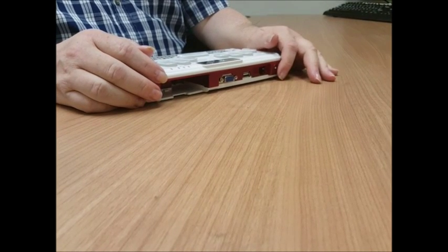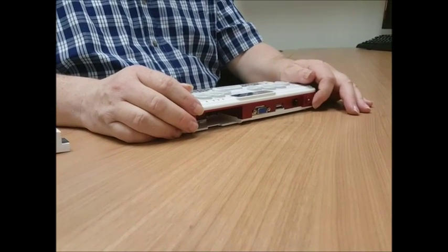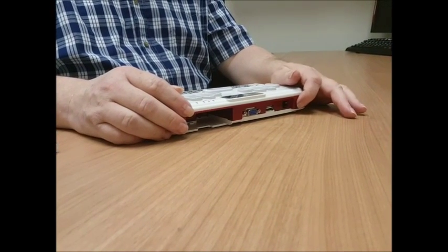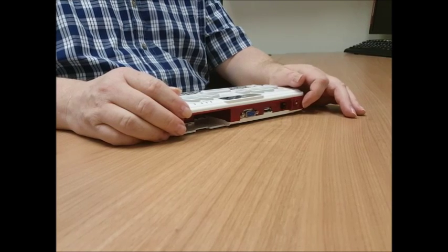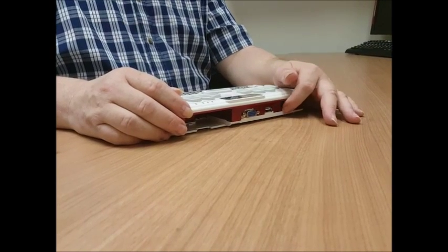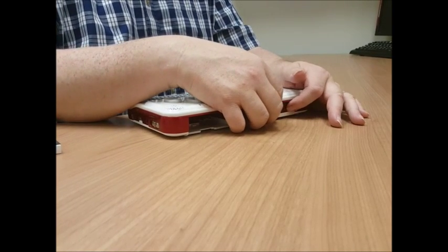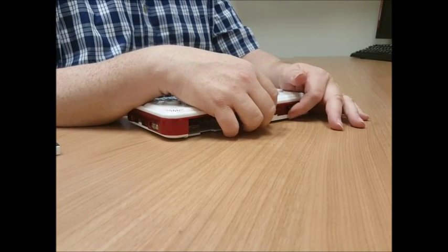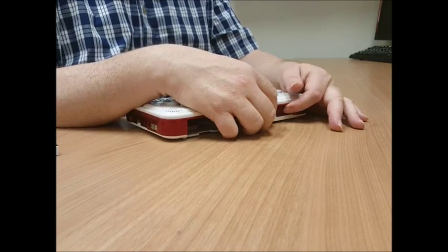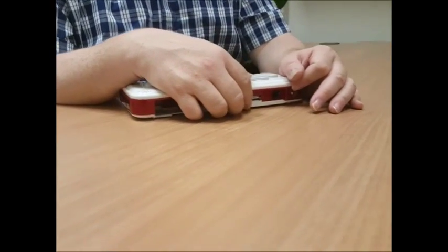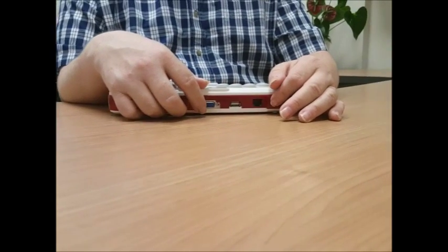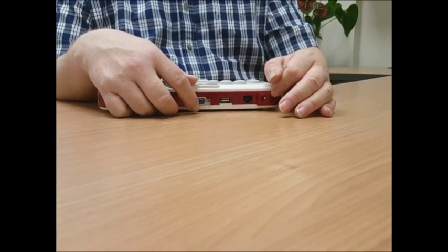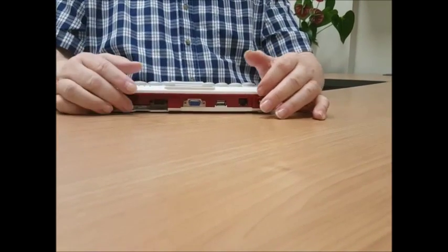On the back left corner is the reset button. You'll feel like a round indented hole with a little button in the middle of it. That's the reset button. And then the unit kind of goes in a little bit, and there are three connectors back here. First is the Ethernet connector, then a third USB port, and then the video output port. It's a VGA port, so you can connect it to a VGA monitor.